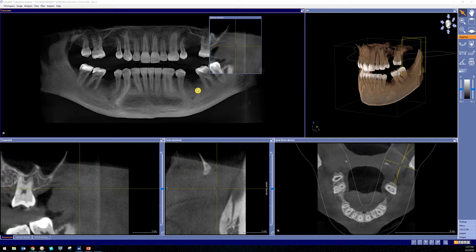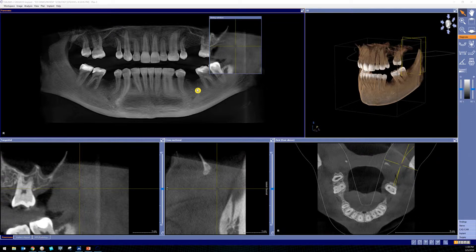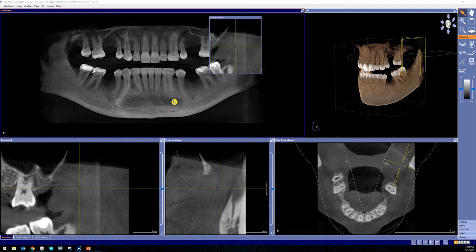If you remember the 80s and 90s Disney sing-along videos where they asked you to follow the bouncing mouse, these are going to be a little bit different — I'm going to ask you to follow the yellow mouse. As we're looking at this 8x8 field of view volume from any Dentsply Sirona 3D machine, you'll notice that we have distortion in the anterior region of this particular image. This is actually not from patient movement, although it could be — this is because we haven't set the panoramic curve. You will need to do this each time you've acquired a 3D volume.